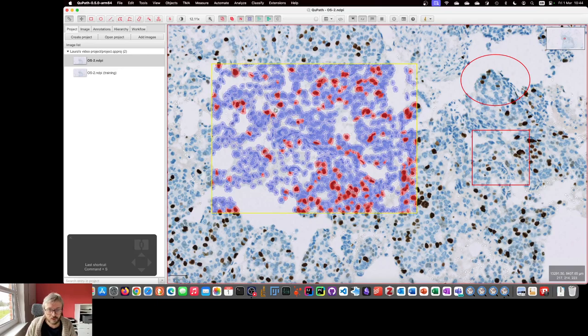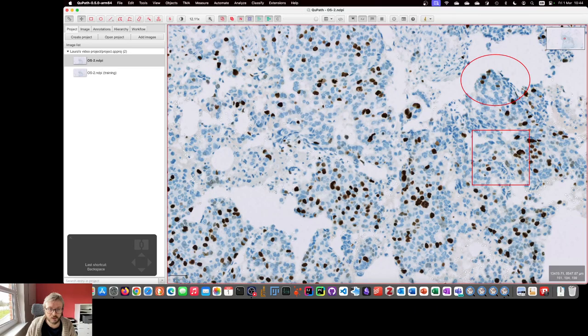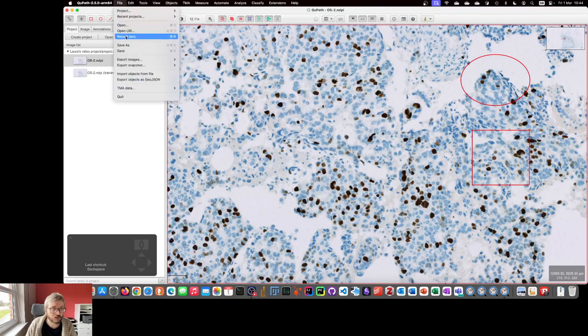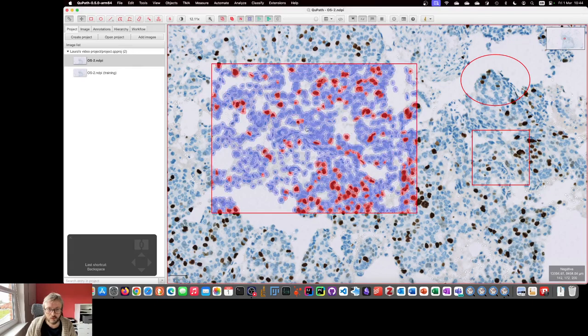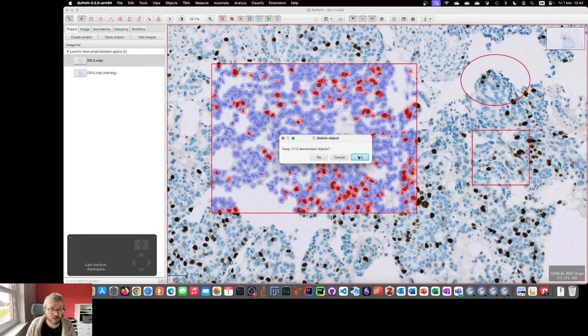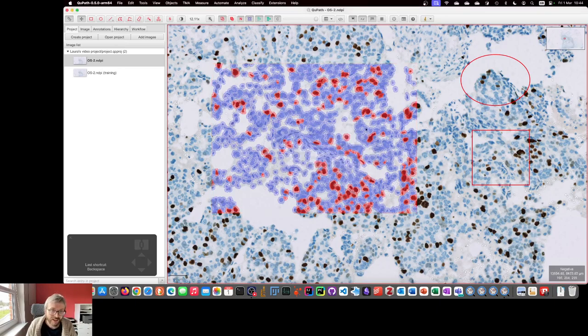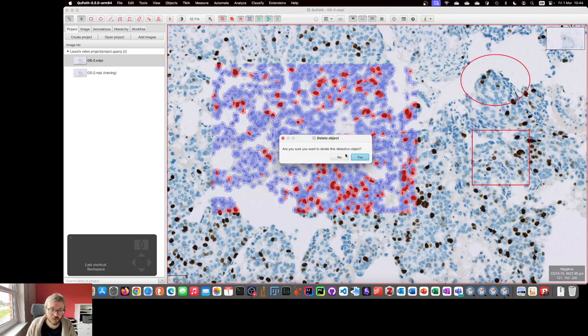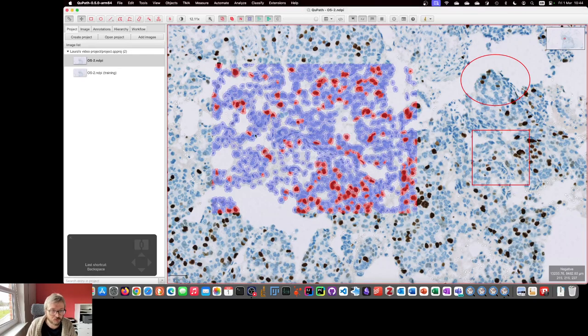So, the issue is, if I double click on this, I can press Backspace to delete. If I don't keep the descendant objects, fantastic, that's what we wanted, the cells were gone as well. But, if I press Yes, which is actually the default option, it will keep all of the cells inside. And yeah, as you saw, you can double click on each of them, select them individually. But there's over a thousand, so nobody's going to want to do that.